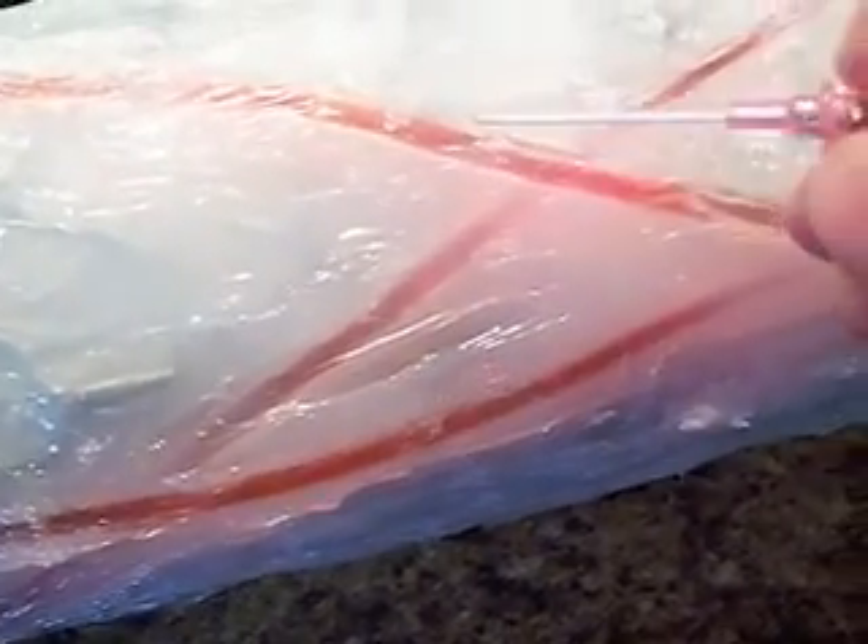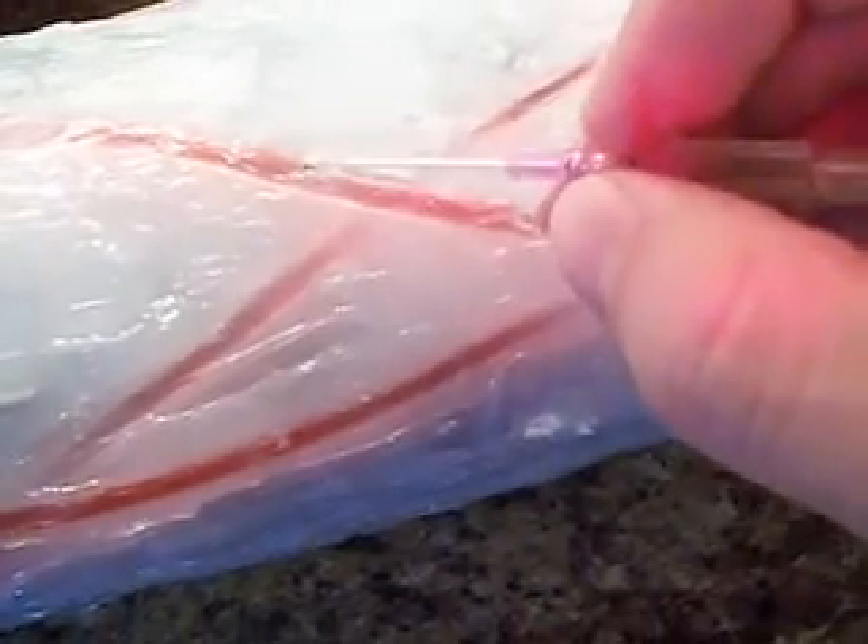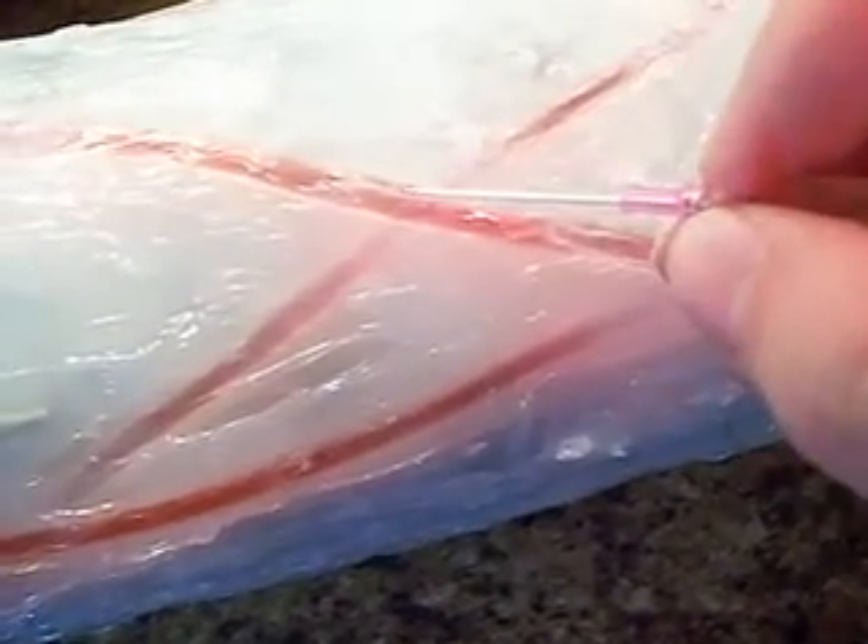I have the arm with blood flowing through it now. I'm going to try to do a puncture and see if it gives me any flashback. And here's how this works — so here we go.